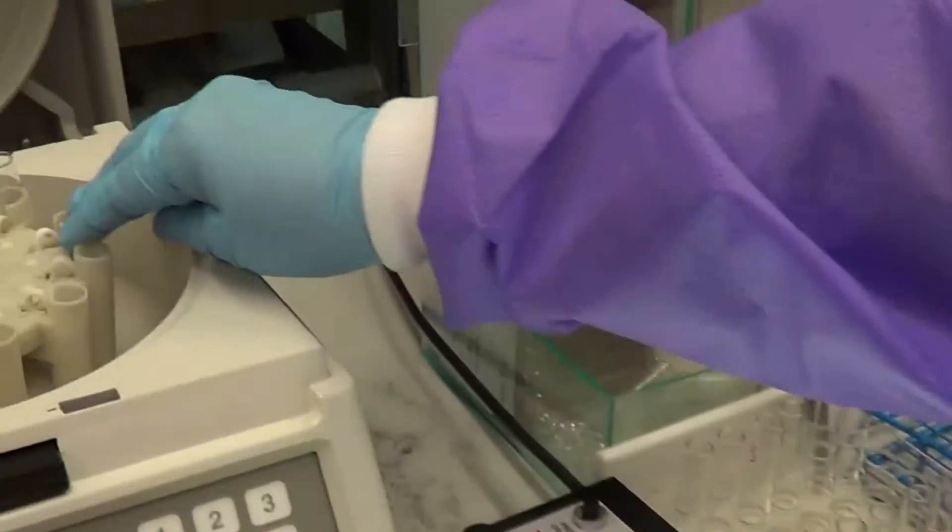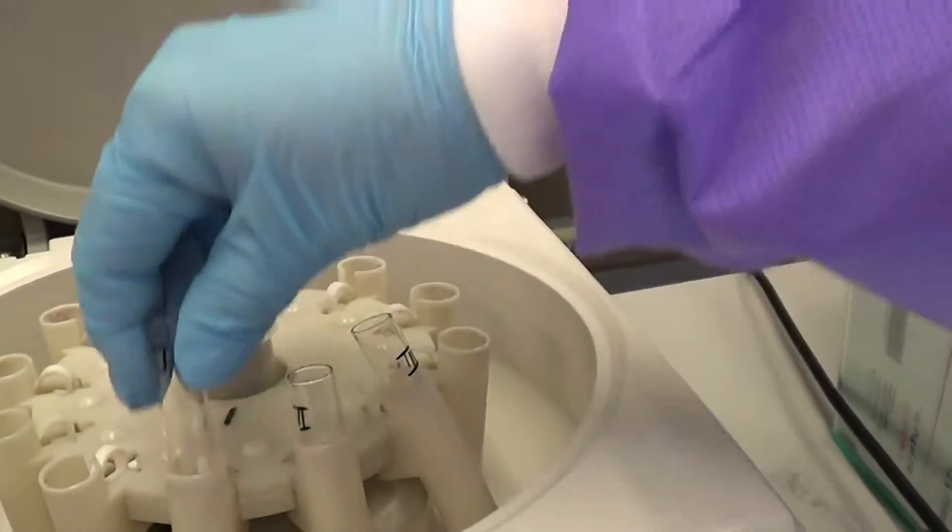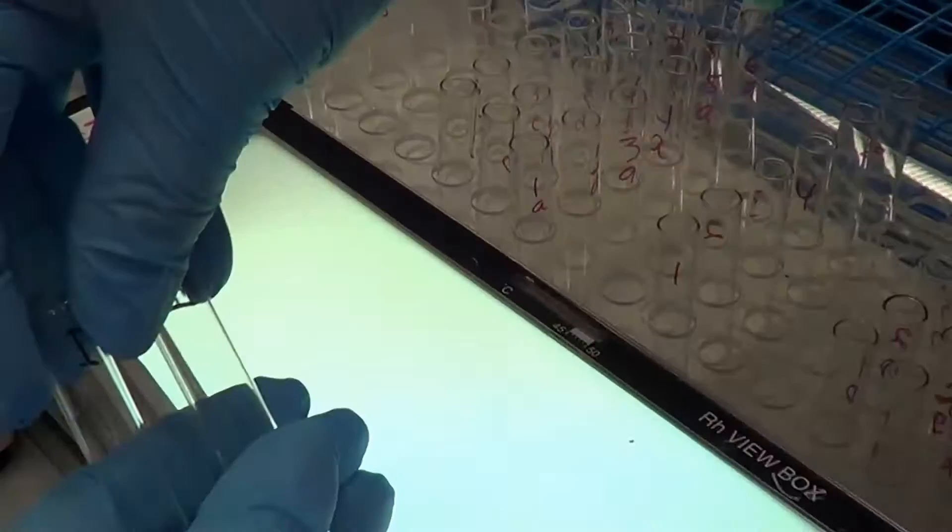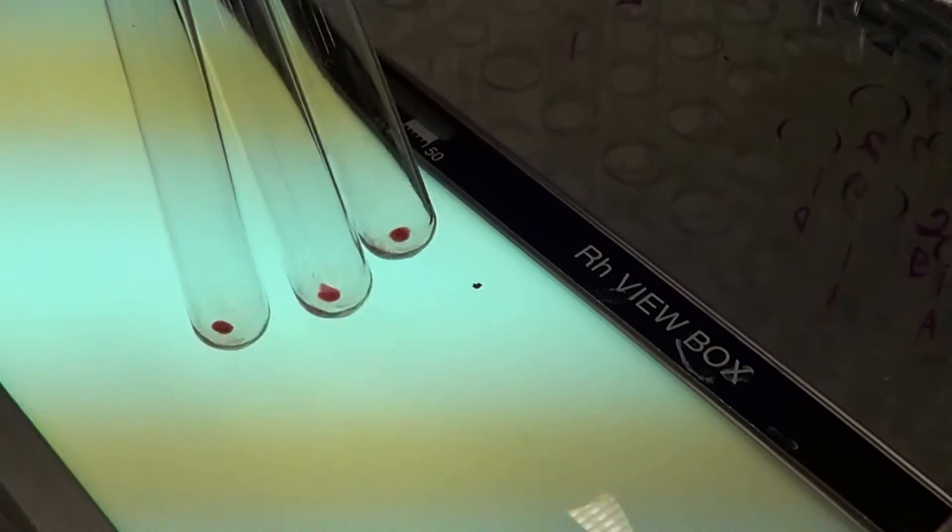The second sample we are also going to check. We suspend.